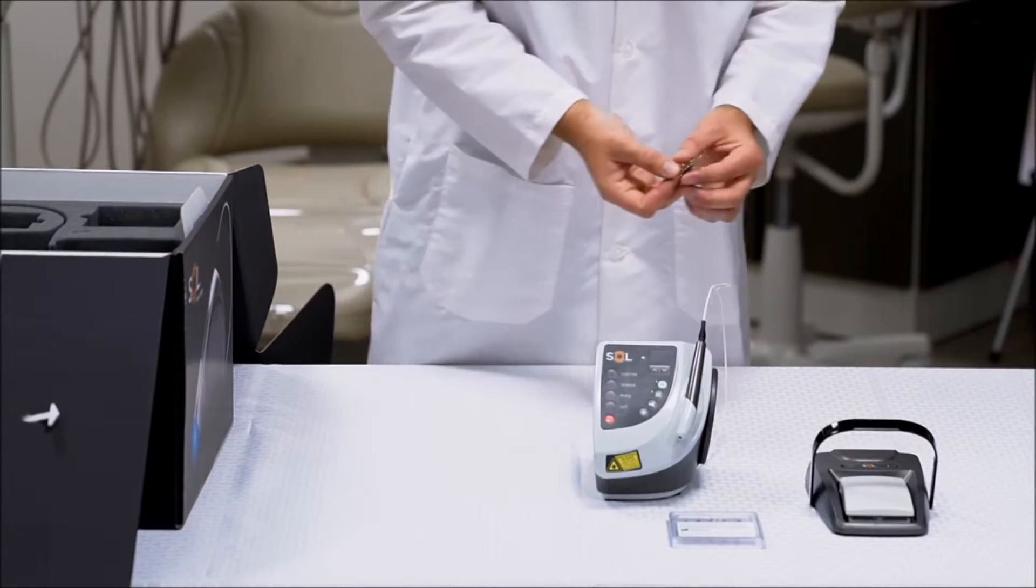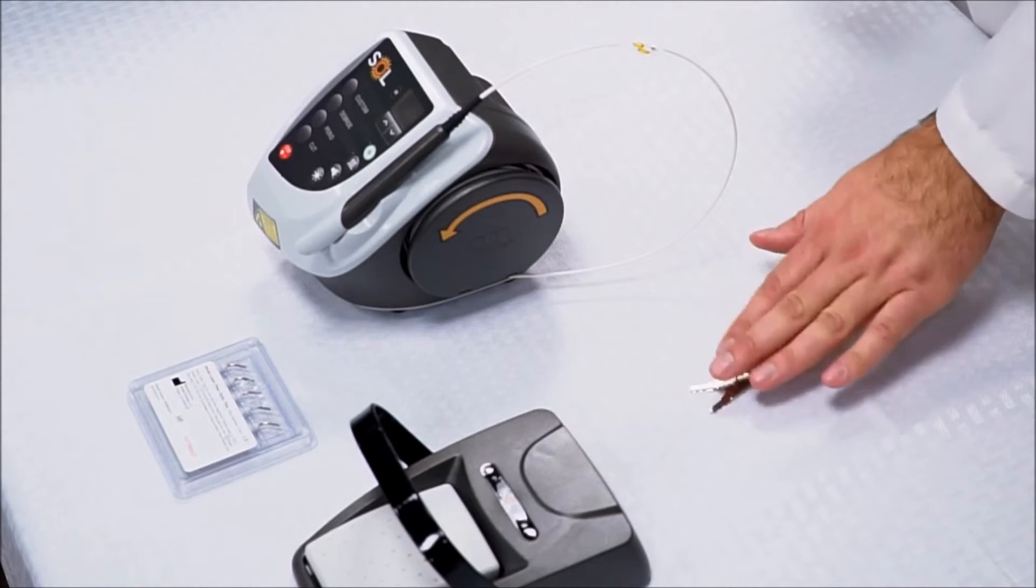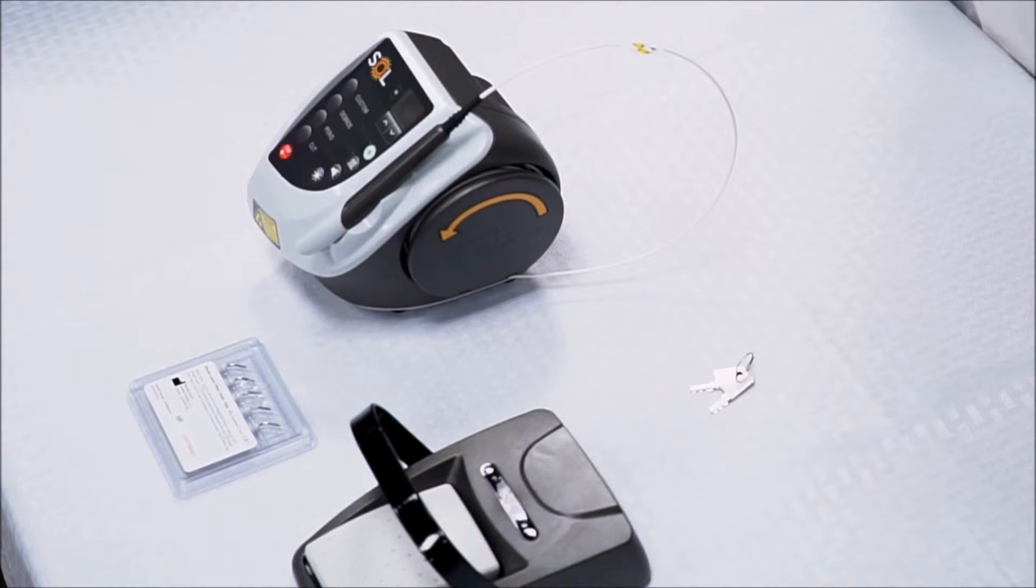And then lastly, keys to activate your unit. This is another safety precaution to make sure the unit is not accidentally used.